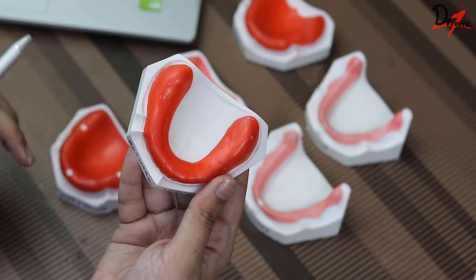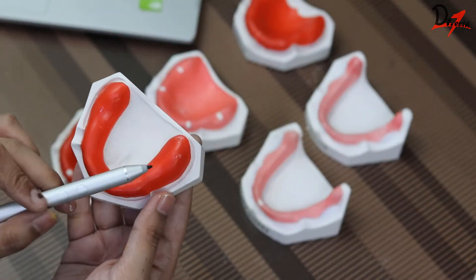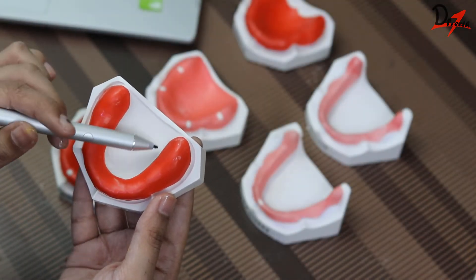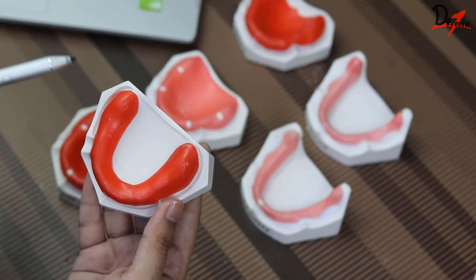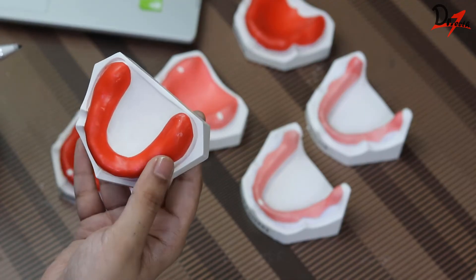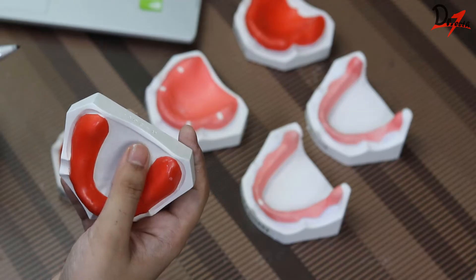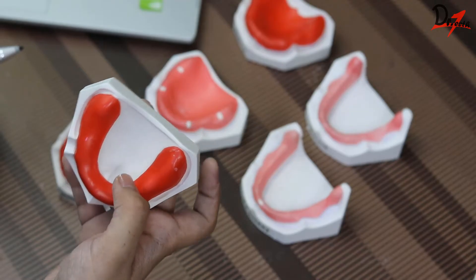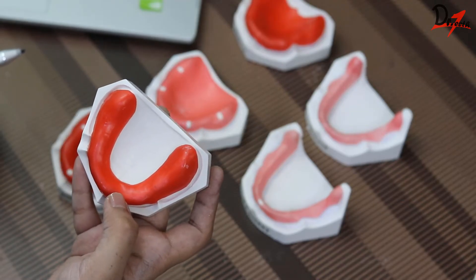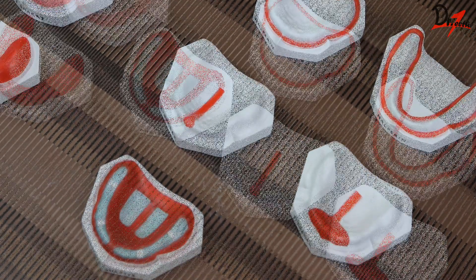Then we have the Bernard and Levin design. According to them, we should adapt the wax to all areas except the posterior part of the palate. As you can see here, we have all the tissues covered, but the palate is left open.